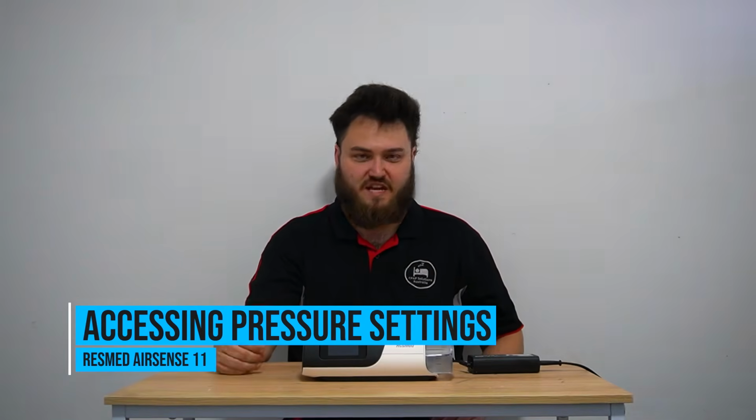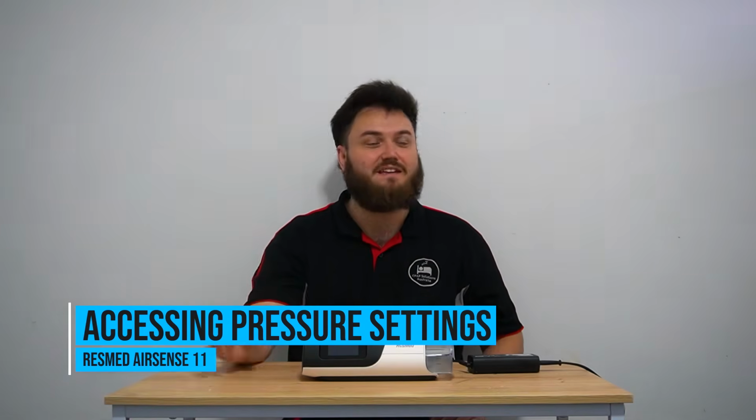Today I just want to quickly show you how you can access the pressure settings on your machine so you can adjust it to your liking in case on some nights you're not getting the pressure you think you need. Here's how to access that setting.